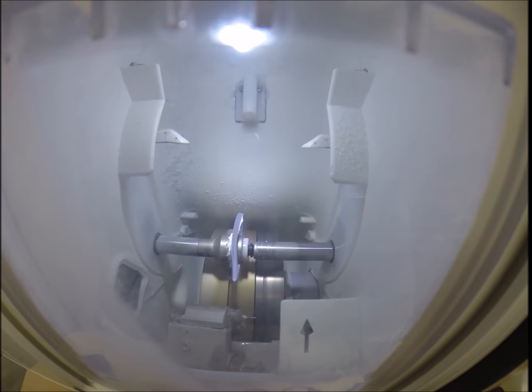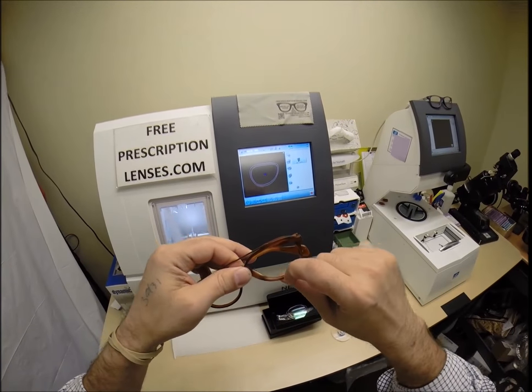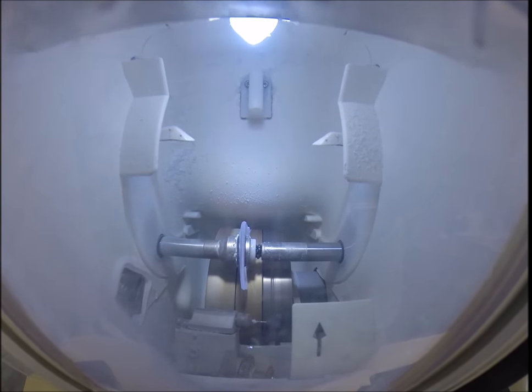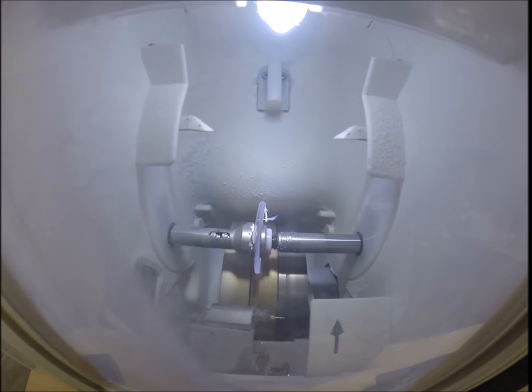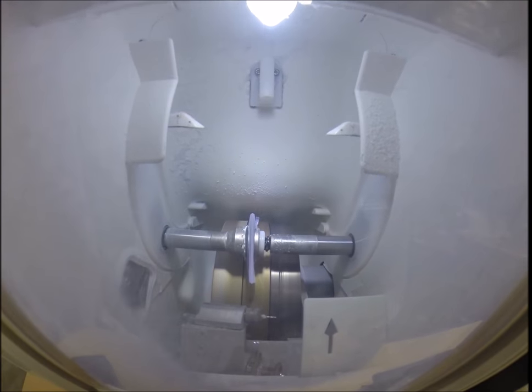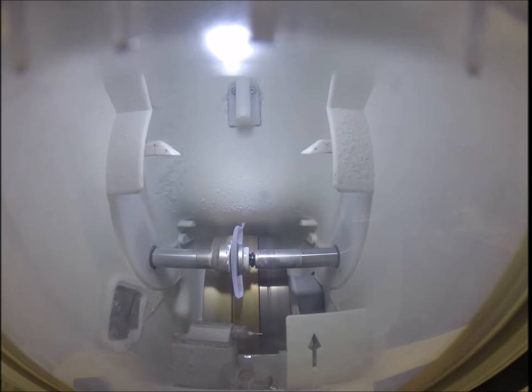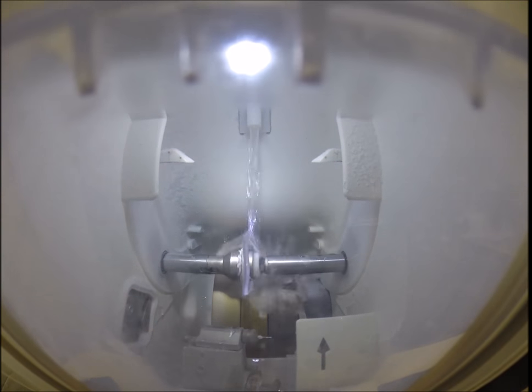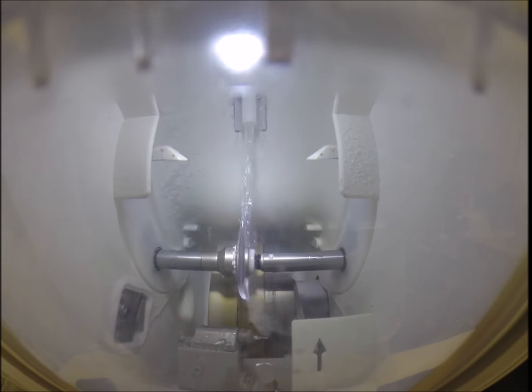So now the lens has moved to the bevel wheel. It's getting that V-shaped bevel, so it fits inside the bevel of the frame. The knife-like edge, it's no longer flat. Still, a very dull knife like me, but knife-like edge nonetheless. Your lens will be so sharp if you were to take it out of your frame that you might be able to cut through a piece of wet tissue. So water has begun spraying onto the lens to wash off any schwarf.